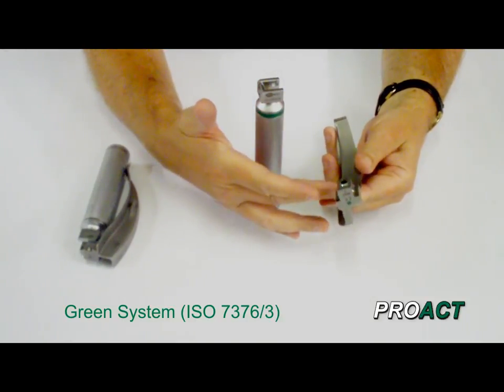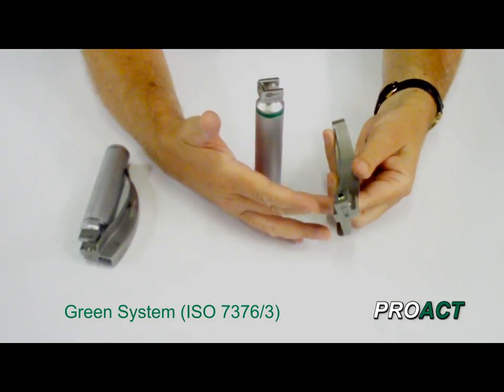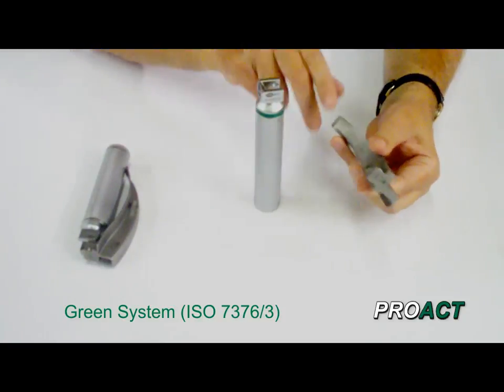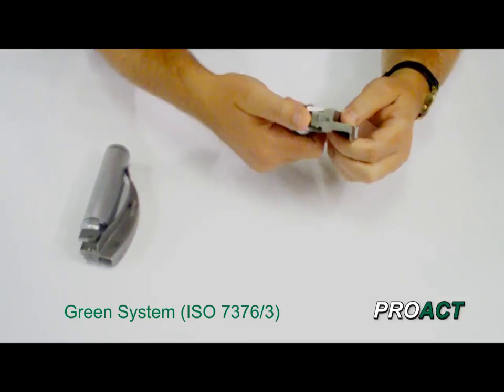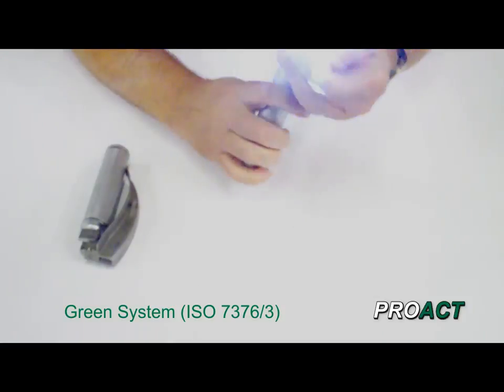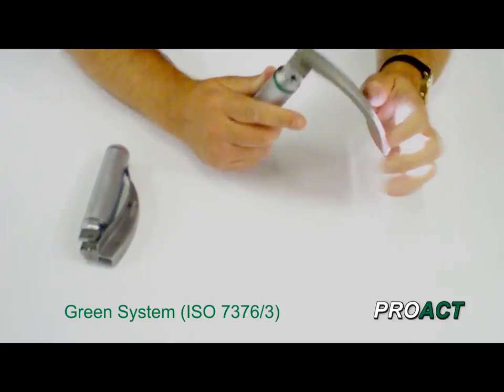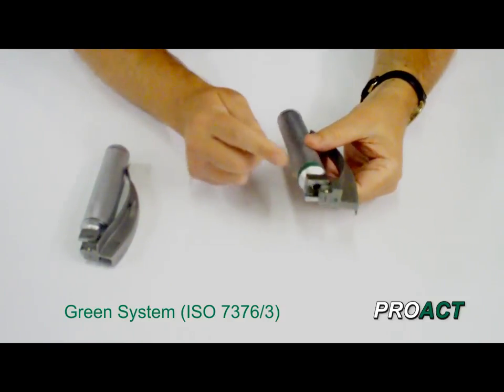On a reusable blade this is normally a glass fiber optic, which are the best type — they have extremely efficient transmission, and if you have a bright light here you'll end up with a very bright light here. So it fits onto the handle in the same way — click and up — and you can see there's an extremely bright light coming out of there.